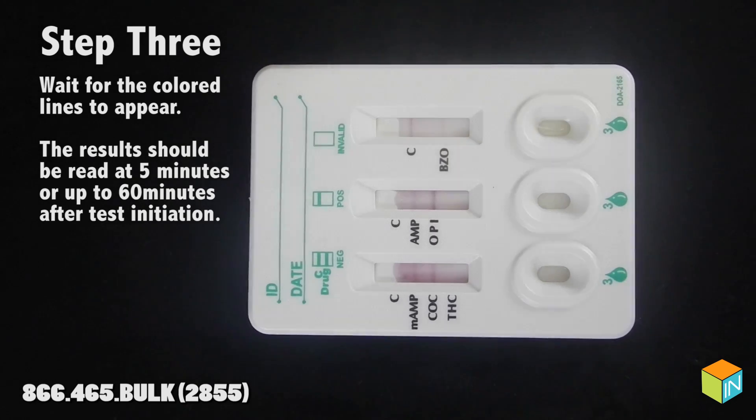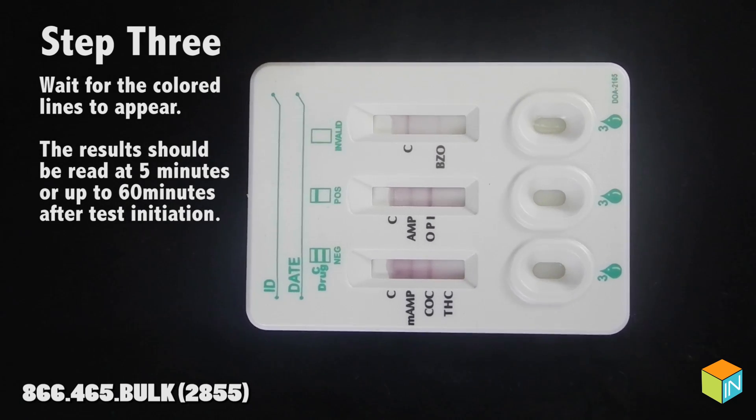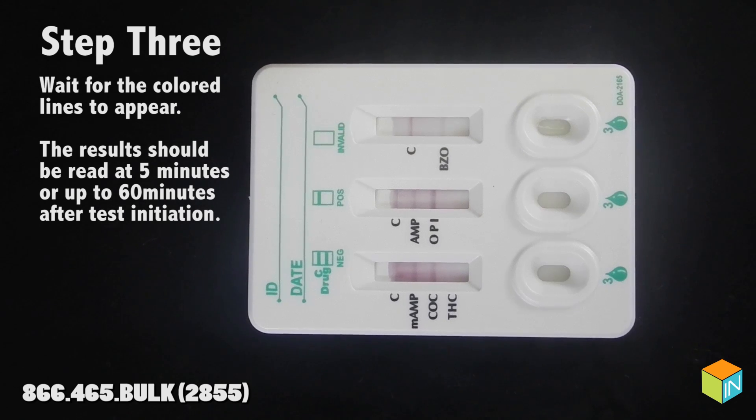Step 3: Wait for the colored lines to appear. The results should be read at 5 minutes or up to 60 minutes after test initiation.